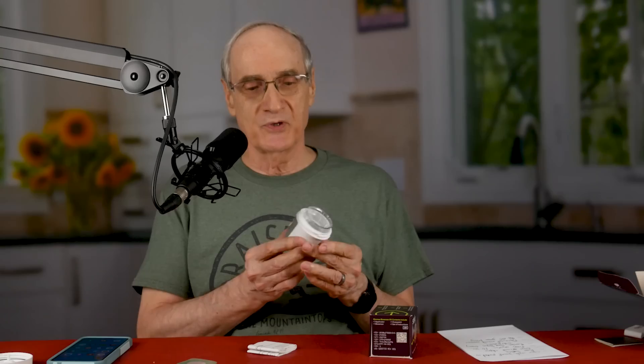And there we go. One of the Dexcom videos says don't put your finger inside. You've got this clear plastic guard, which when you press it up against your arm to apply the sensor, it's supposed to go down before you press the button. This is the magic button that will shoot the sensor onto your arm. But first you wash the part of your arm where you plan to stick it — they recommend the underside of the upper arm — and then wipe it with alcohol, which I've done.